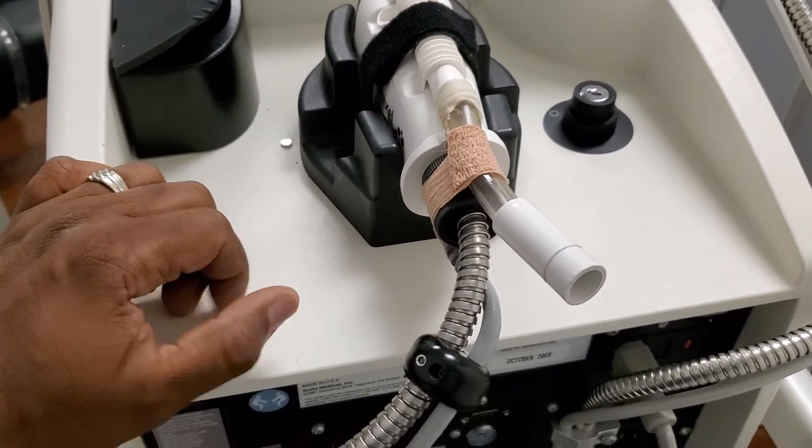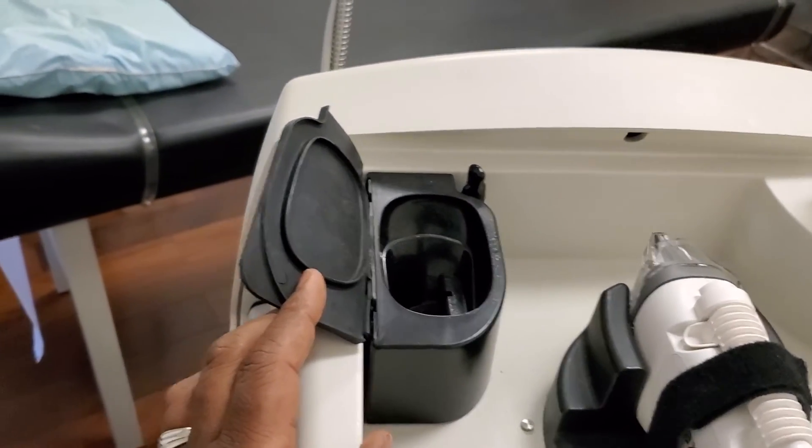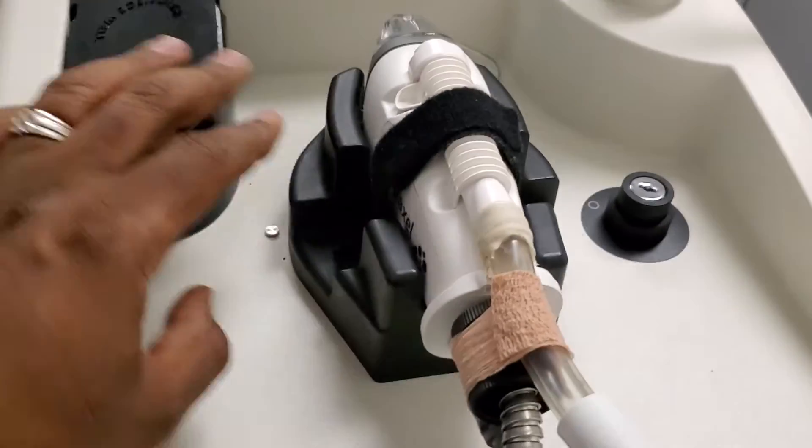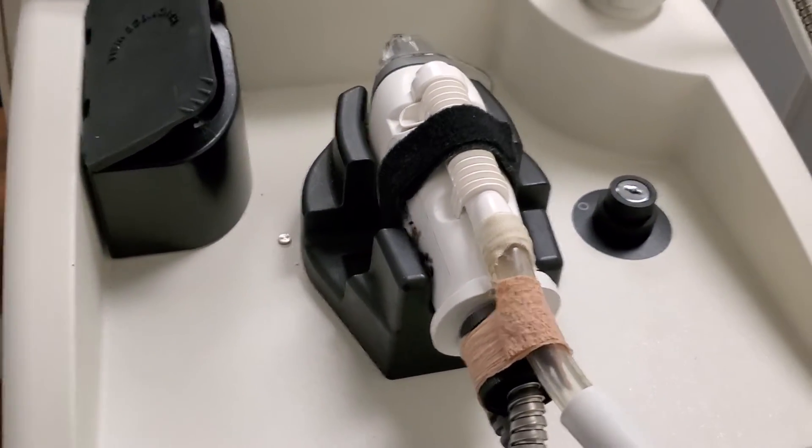If you have any questions, you know how to reach me. But again, please stop leaving the handpiece in the cradle here and place it in the proper place and strap it down so it doesn't fall, just so it's secure. Thank you.